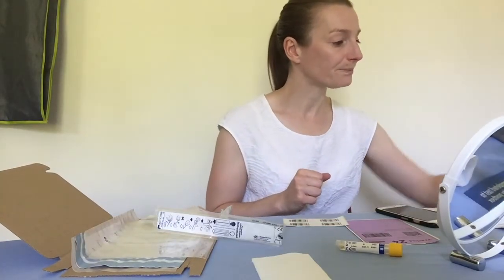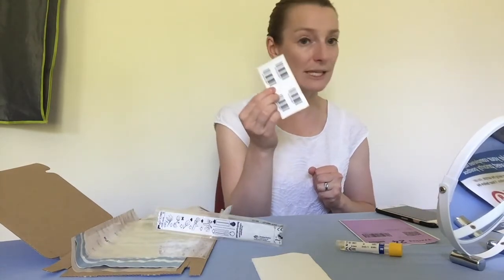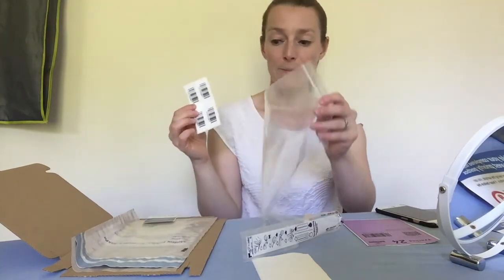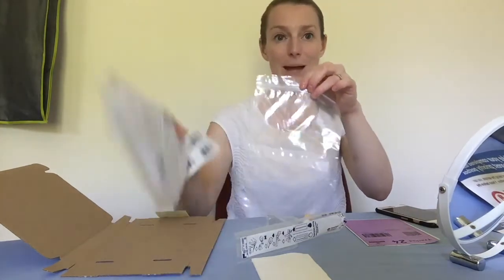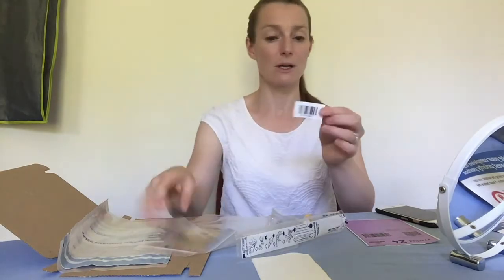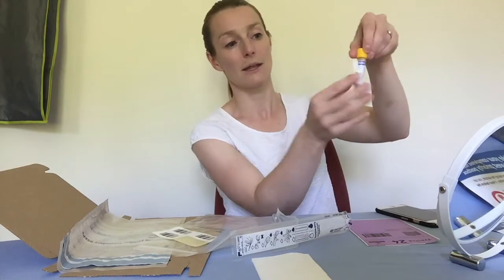The next thing to do is to stick the barcodes, which are included in your pack. You need to stick one barcode onto the vial and one barcode onto the plastic bag. I'll show you how to do that. When you stick the barcode on, you put it vertically down the bottle — like that.